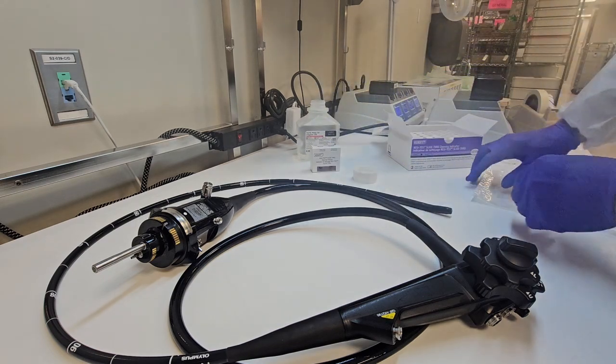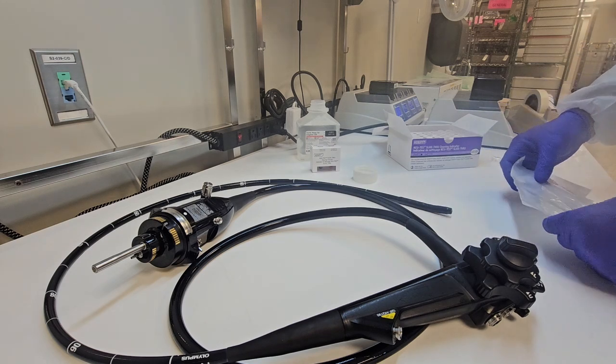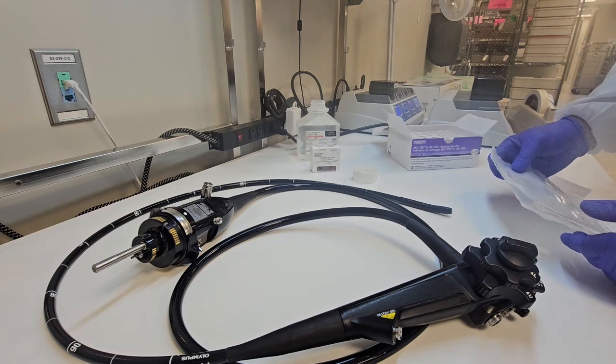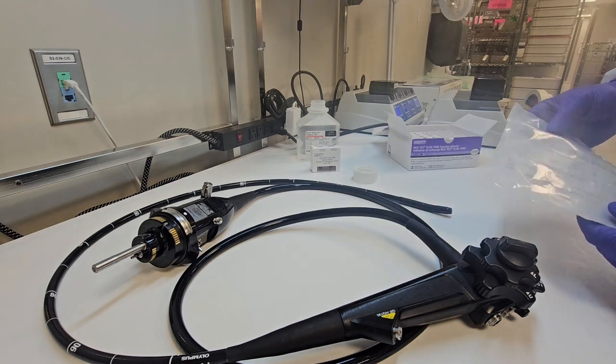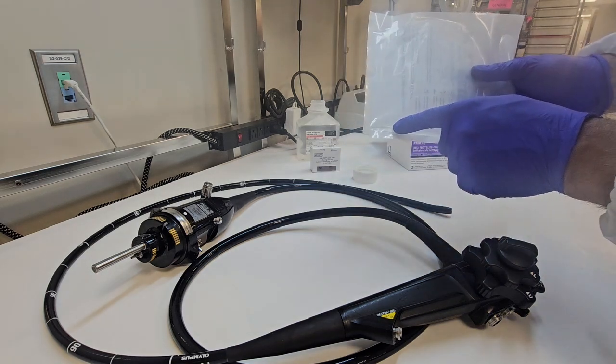Also, read the IFUs because a lot of these tests require that you use some type of moisture to either dip the brush or squeegee and/or flush the channel.